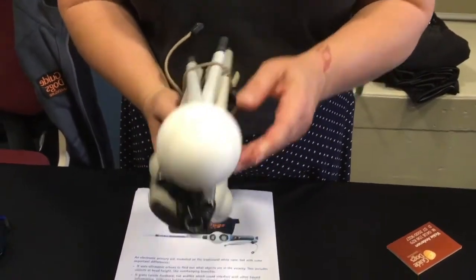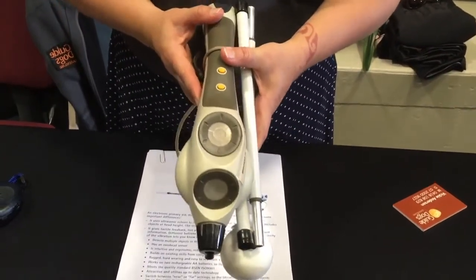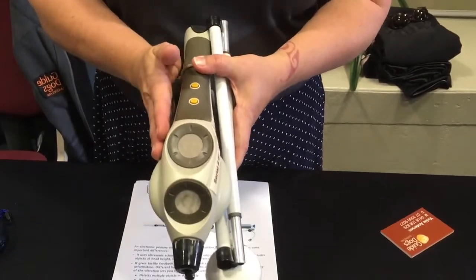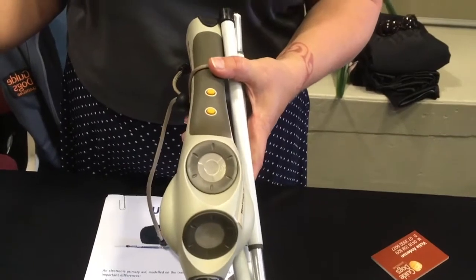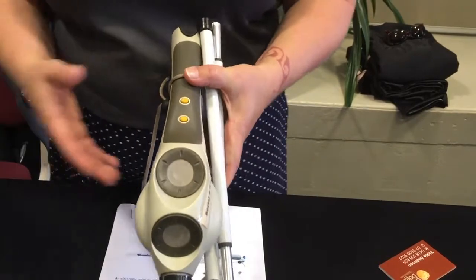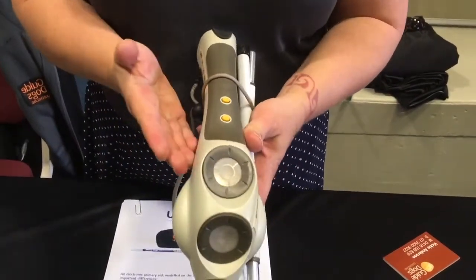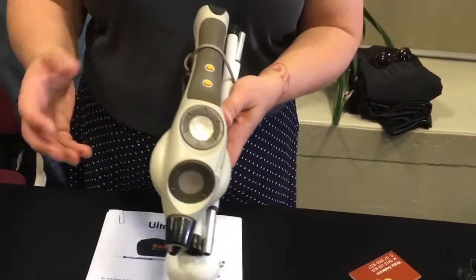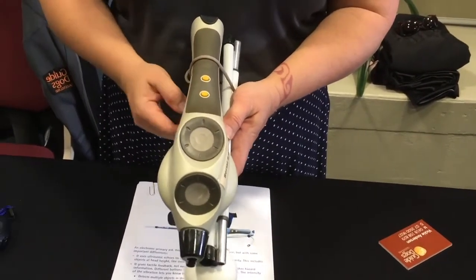This is what you'd call a more advanced mobility aid. The criteria to use something like this is to already have learned how to use a long cane — being a proficient cane user first, so we're not teaching you how to use a long cane at the same time as teaching you how to use the device. Once you're a proficient cane user, anyone can come in and ask to try out an Ultra Cane.